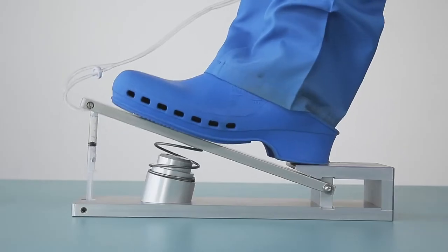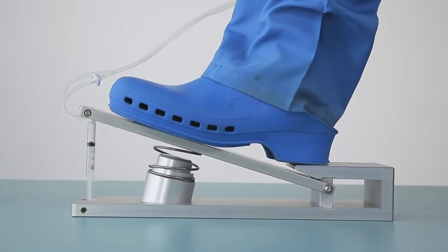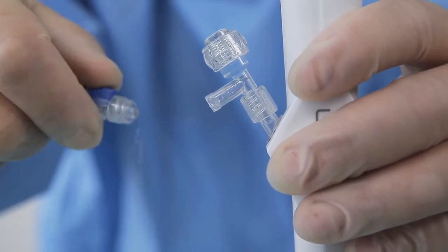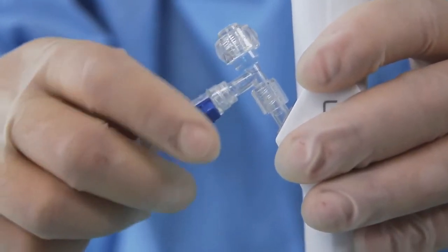A few compressions of the pump will remove residual air from the syringe and the disposable unit. Now the disposable set can be attached with the inflow switch to the urethrorenoscope.